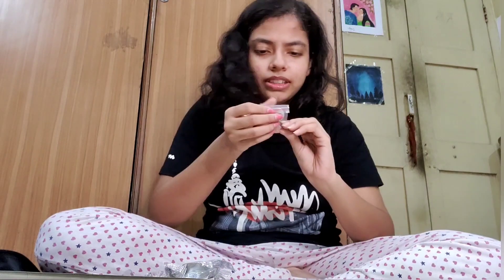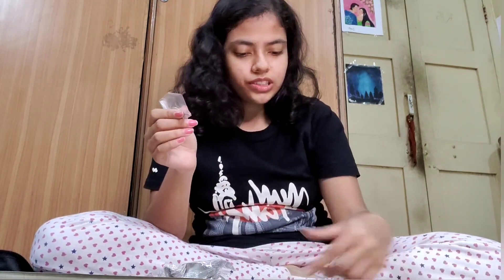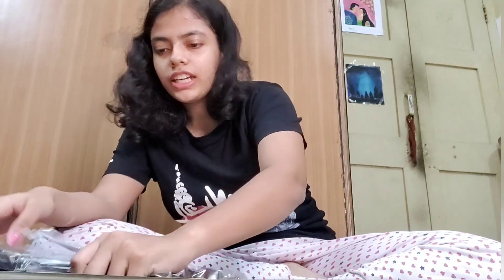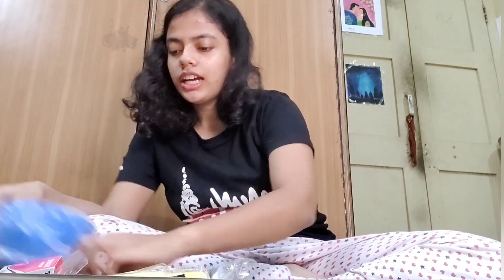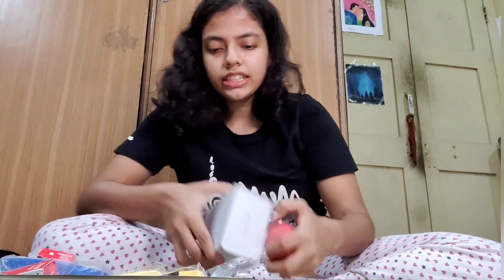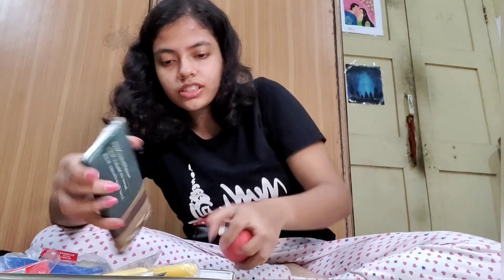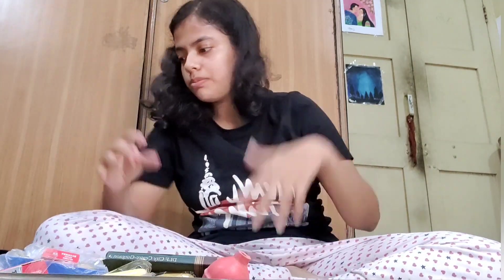That's basically all the things that we got. We got this stud mirror as well, which will be connected to one of these tools. That's basically all that we have in our Prosthodontics kit for now, for the first year. In first year, Prosthodontics exams are not done — in second year they start exams, and clinical use of Prosthodontics starts in third year. So first year is basically pre-clinical introduction to Prosthodontics.